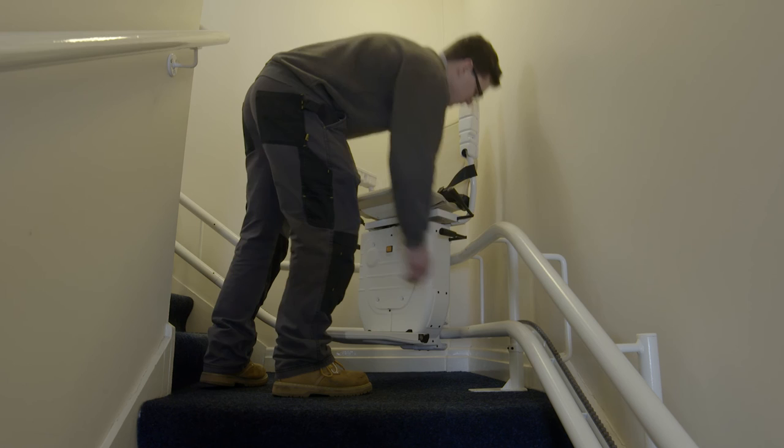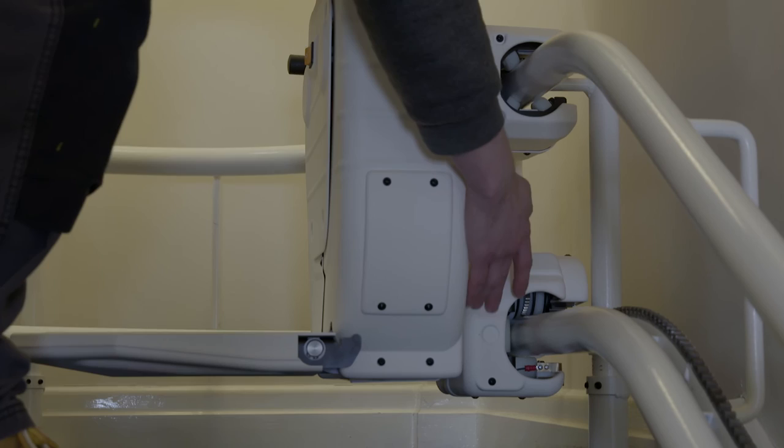Now run the stairlift, placing your hands in front of each sensor, individually running the lift both up and down the rails.